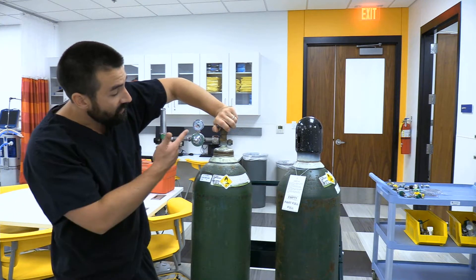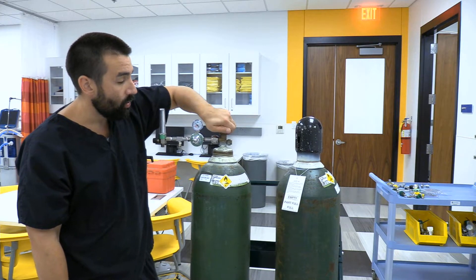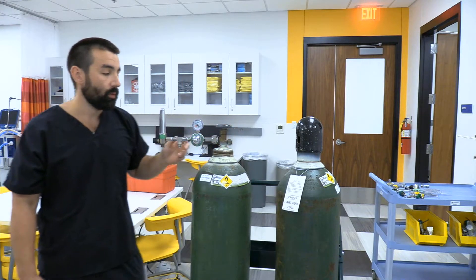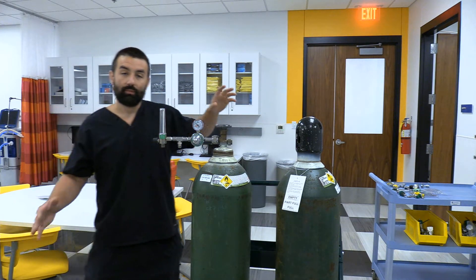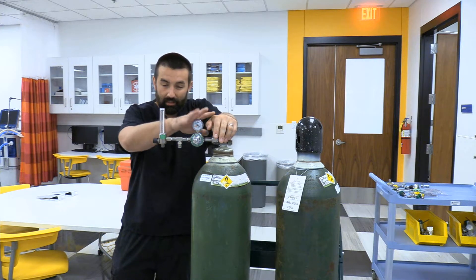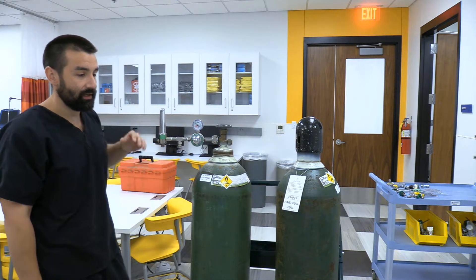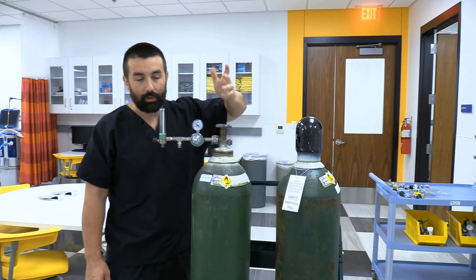Once I have pressure and I'm utilizing the 50 psi, I need to follow recommendations: open this thing all the way up, then do a three-quarter to full turn back to close. This is really important — if you leave it fully open you can get valve freeze, meaning the valve gets stuck in the open position. You shouldn't be transporting it with the regulator on anyway, because if it falls it's very vulnerable and you can't turn the tank off.